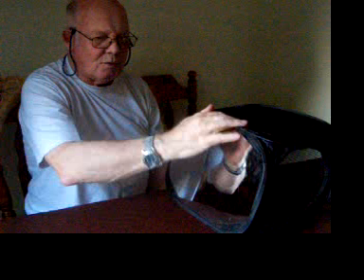I do a series of exercises. The first one is lifting up my hand and placing it down at about one every second for about ten seconds. Then I change to: with my palm on a table, I lower the palm — but you must keep your eyes on the mirror, don't break it — and I get the feeling that my left hand is doing this. I persist with this one for ten repetitions.